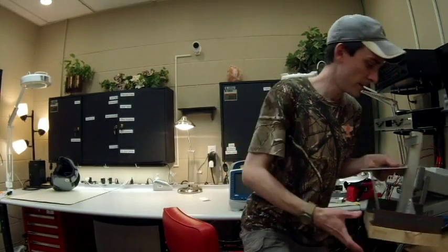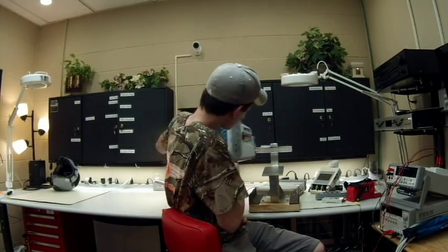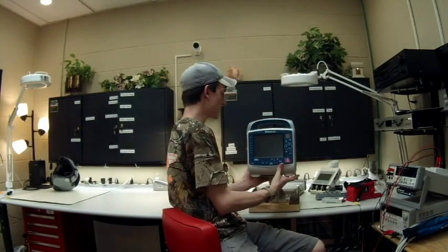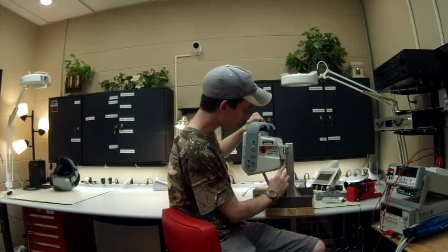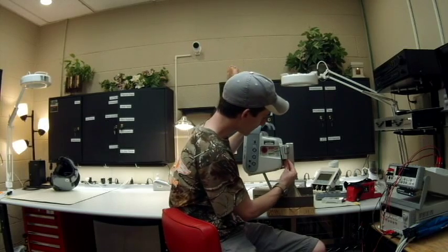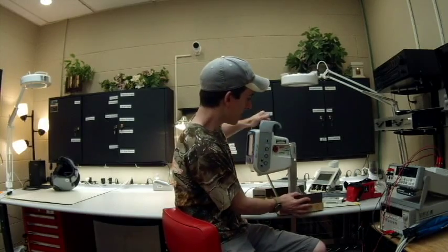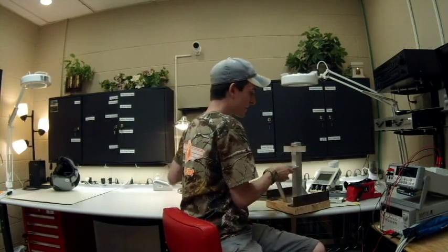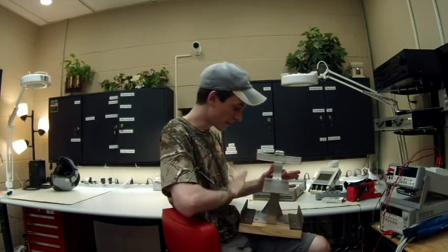These lift levers are also plastic so they constantly break. What we like to do on the MICUs — the Mobile Intensive Care Units — is place the defibrillator on this stand; it just goes in and the locking mechanisms lock it in. They frequently break because people put too much pressure on it when it doesn't sit all the way in, try to force it, and break it off. Only this small unit in the back actually goes into the helicopter — none of the other stuff does.